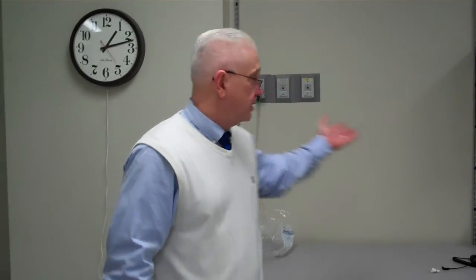This is a two-point calibration. We used 100% our known gas coming from the wall, and then we know that in a room there's 21%. This O2 analyzer now is ready for use in analyzing our oxygen devices. Thank you.